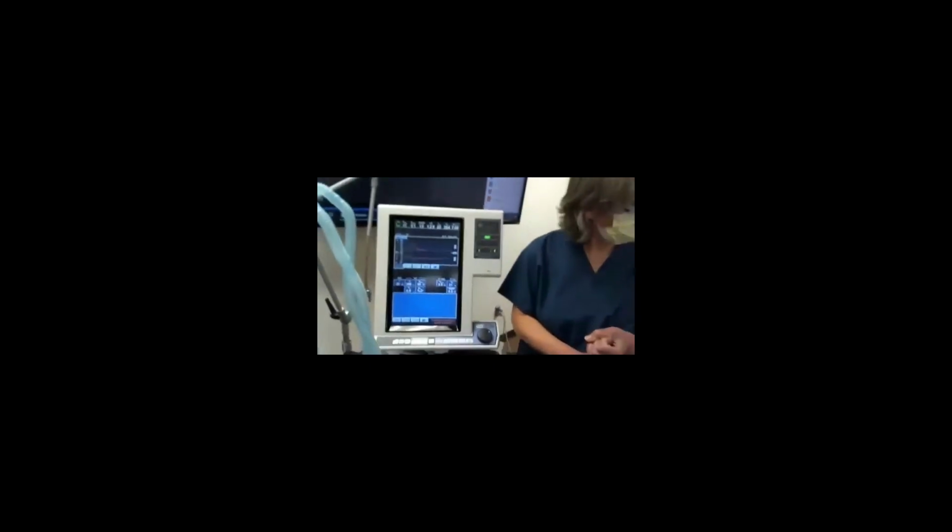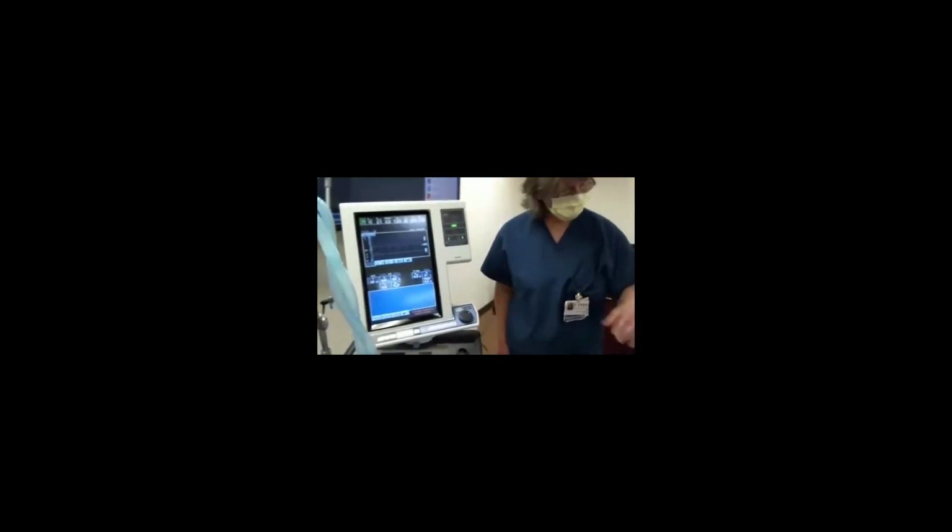So that's the ventilator in a nutshell. This ventilator is capable of doing the assist control mode, which is where you would start, and it's capable of doing pressure control ventilation. This ventilator is a portable ventilator. It's the LTV. It is also capable of doing the same thing this does. This has a lot more controls that you can play with, the flows and things, and monitoring the machines. But this will also do the job.